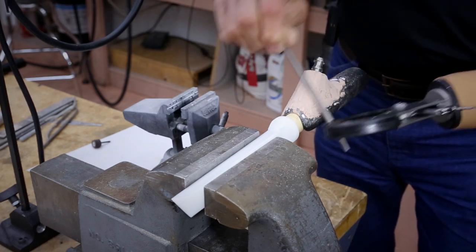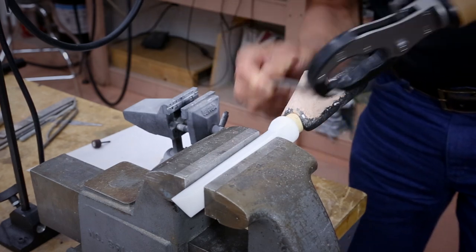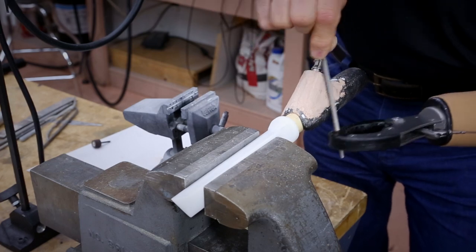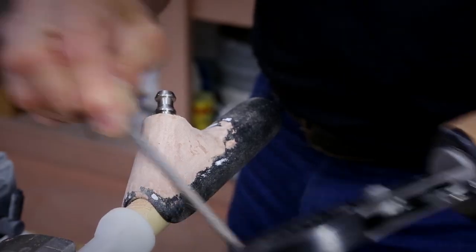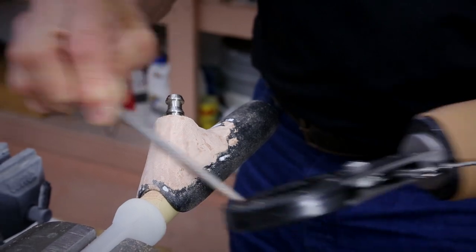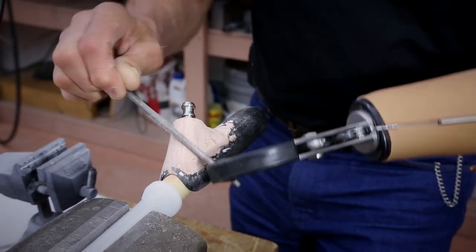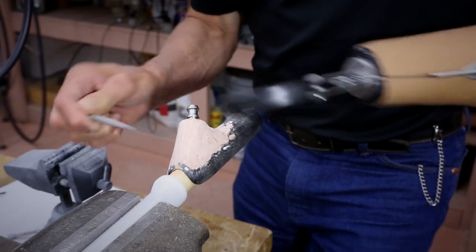I have good control over this file. I'm going to use it to sand and start to shape. This is kind of an epoxy material that we've laid onto this pattern. I'll probably lay on additional epoxy at another time until I get this into a conformation that gives me the final shape that I want for this pattern.